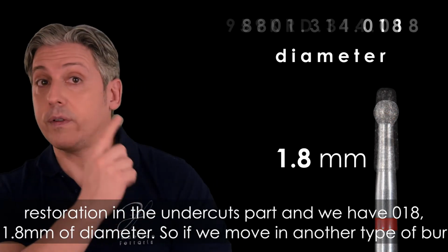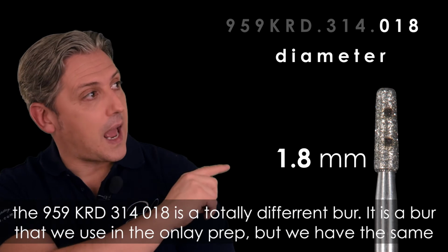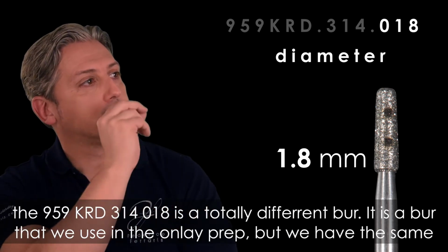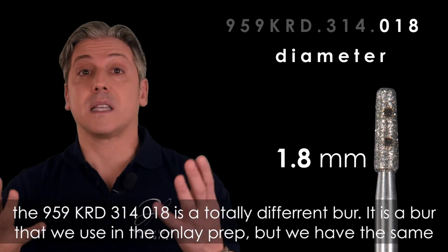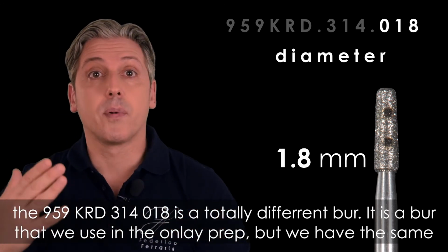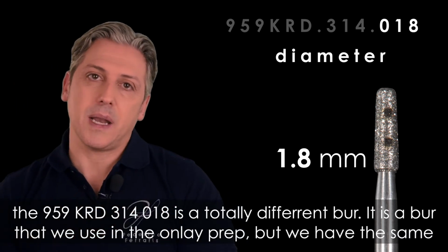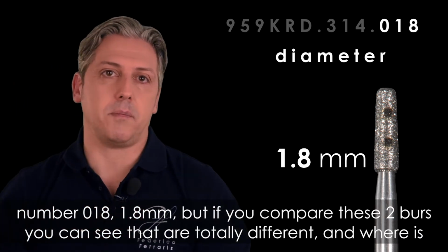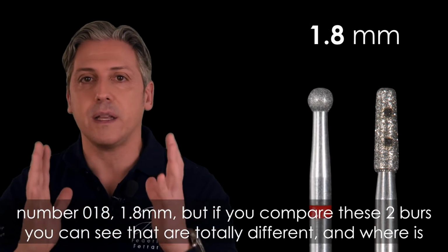So if we move to another type of burr, the 959 KRD 314 018 is a totally different burr. It's a burr that we use in the onlay prep, but we have the same number, 018, 1.8 millimeter. But if you compare these two burrs, you can see that they are totally different.